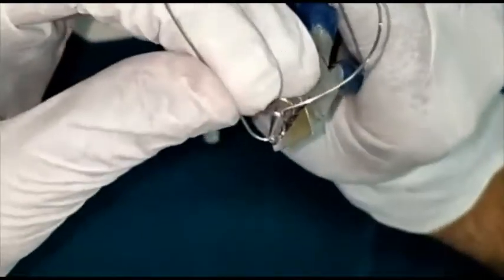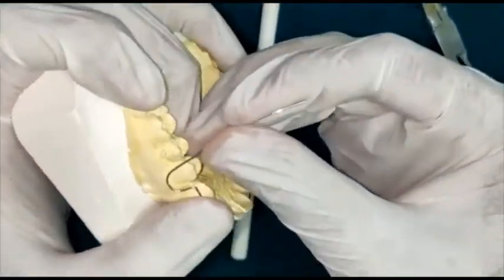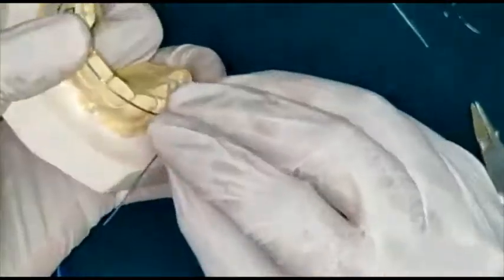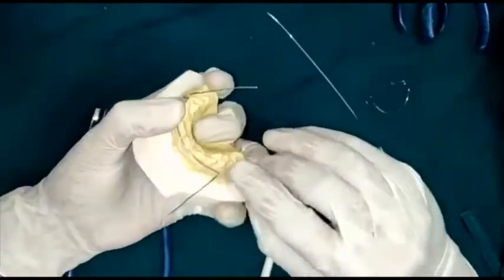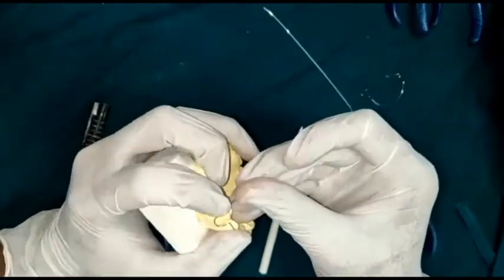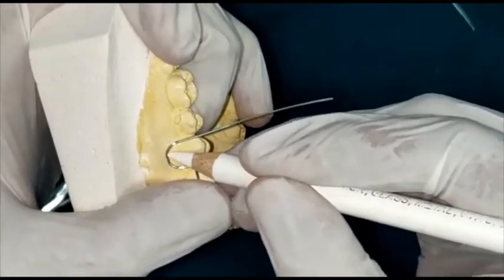You will have to make slight adjustments. When you place this part, the first major thing to check is that your midline should coincide with what you have marked on the wire. On the other side, you will give the same bend, and when the U-loop lies there, it should be 1.5 to 2 mm below the marginal gingiva.